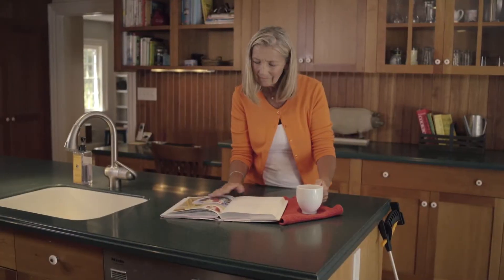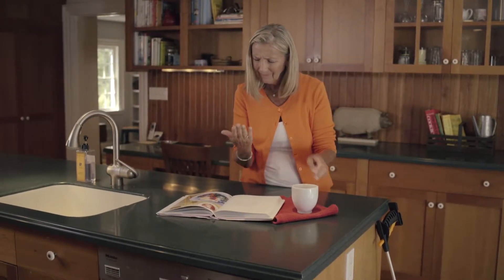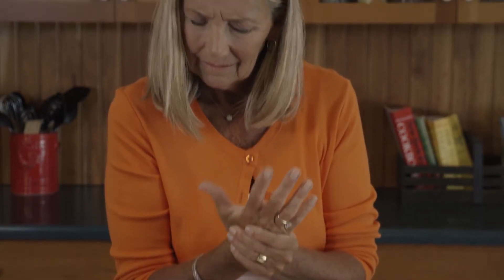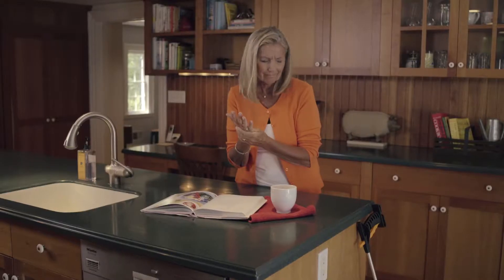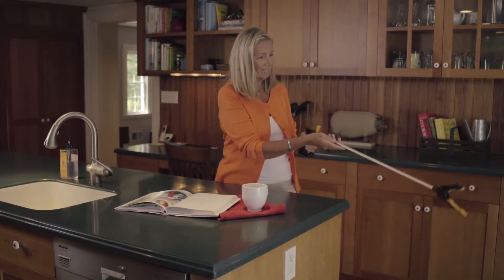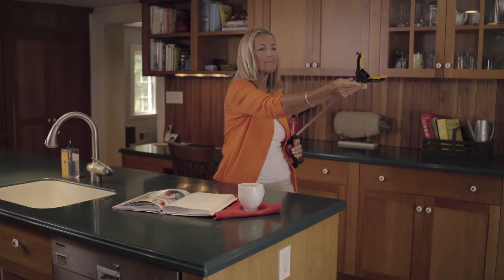When Mom's mobility was compromised, I knew I needed to get her something to help her remain as independent and healthy as possible. Some days I am unstable on my feet, or I don't have the strength to grab what I've dropped or to reach what's too high. And the thought of a step stool makes me nervous I'd fall. That's a risk I can't take.